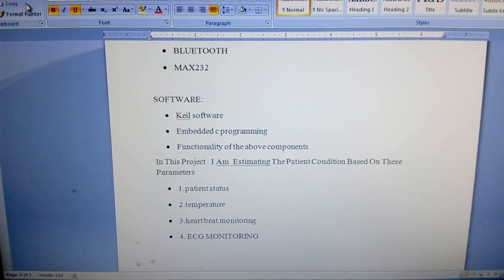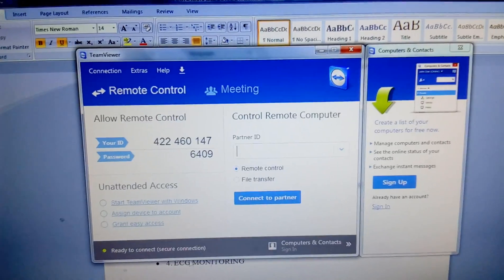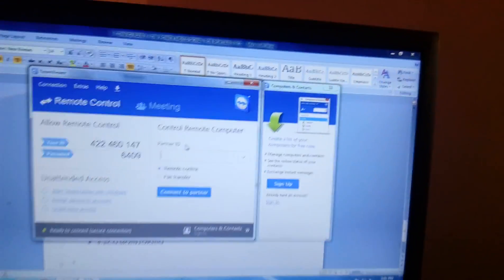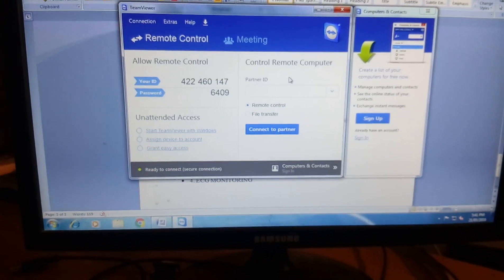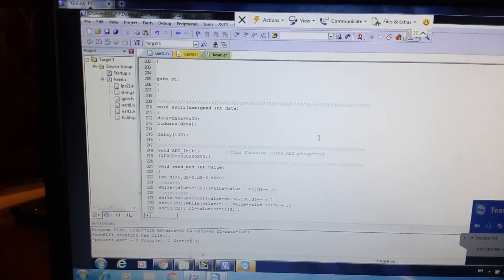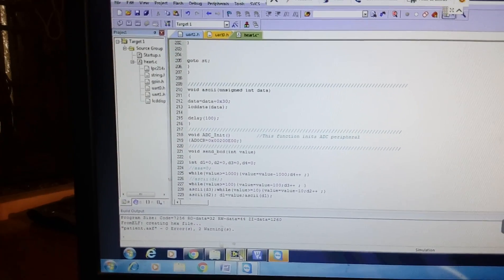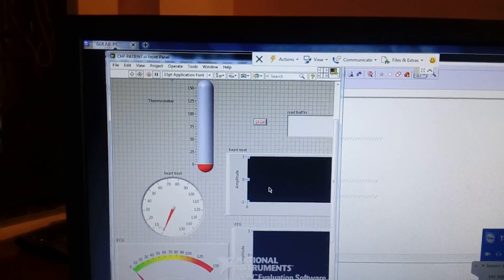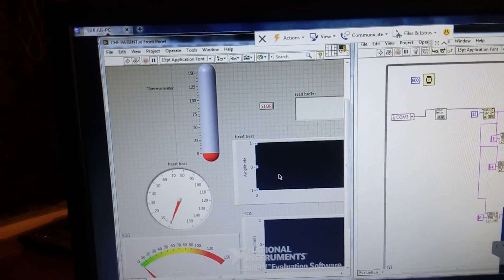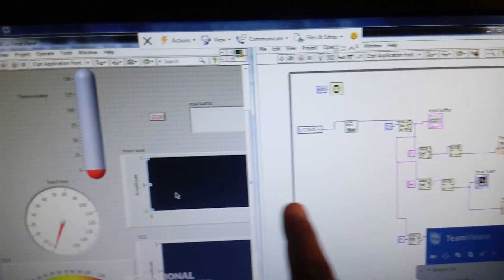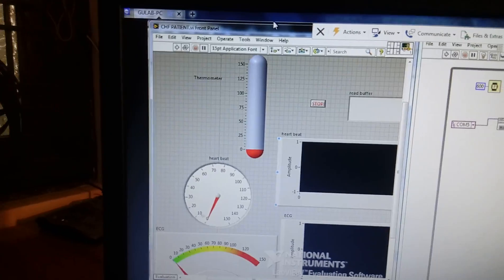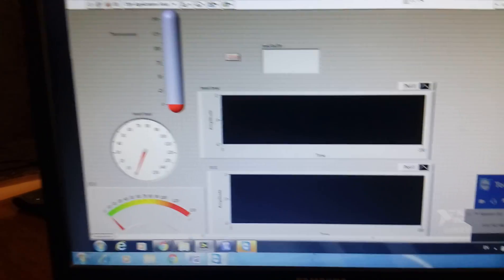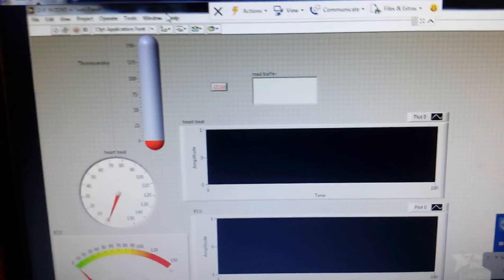I'm going to get patient monitoring temperature, heartbeat, and ECG. I want to see the output on the monitoring called TeamViewer. This is the patient monitoring unit and doctor can see the output on the unit. This is the block diagram window and this is the output window. Doctor can continuously see the data.